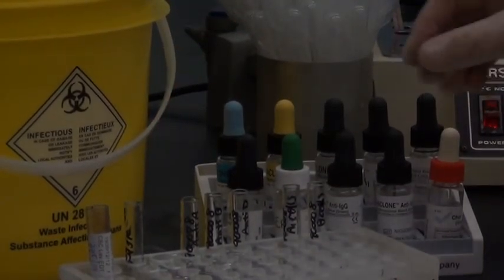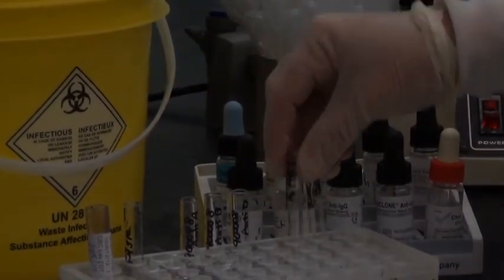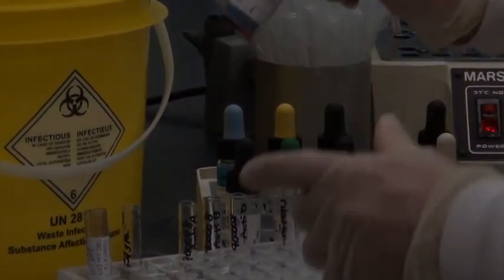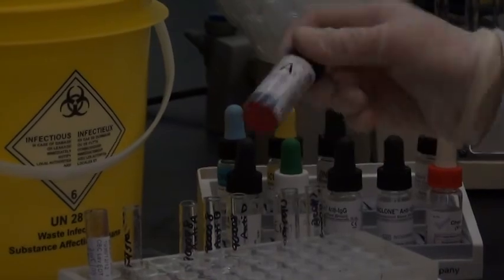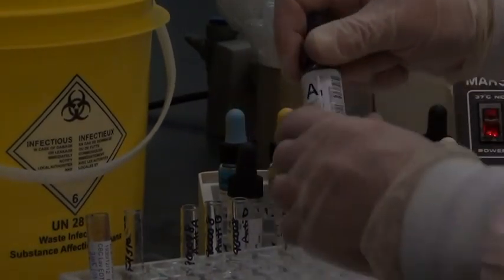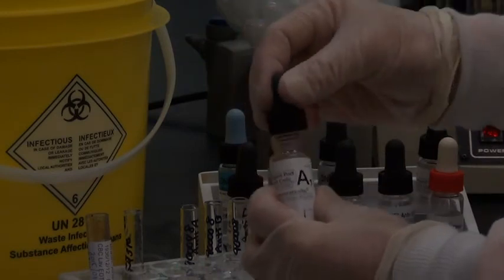So that's just going in the biohazard. My reverse grouping still needs cells in it, so I'm going to quite carefully invert the cells, because they will be stuck onto the bottom.